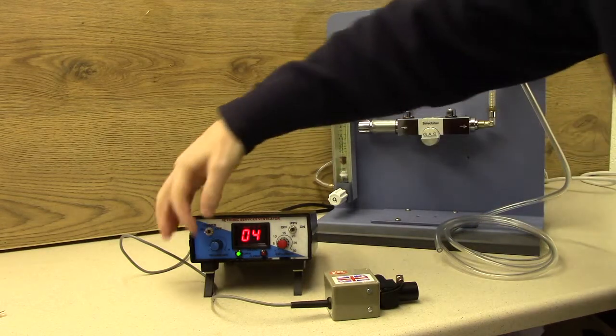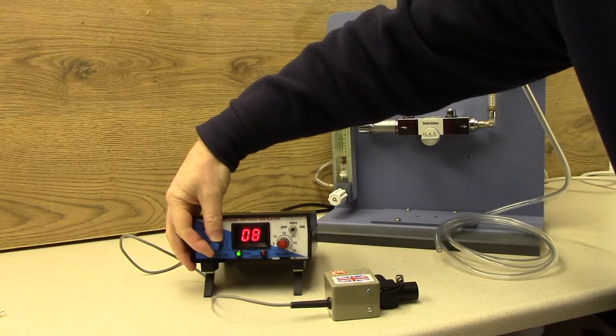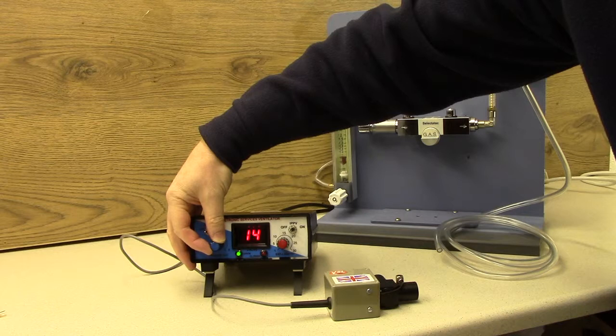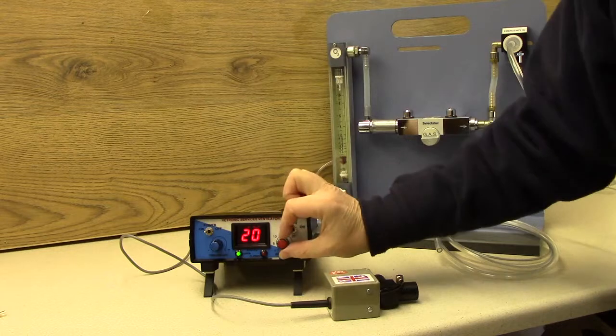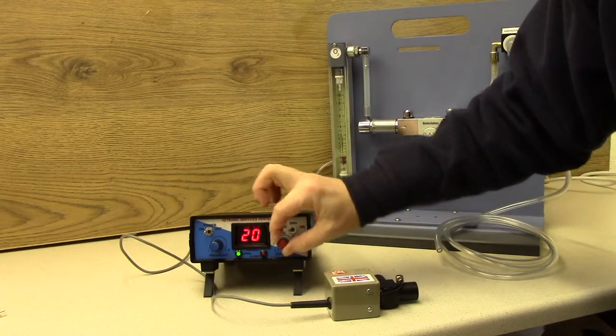Turn the machine on and set the trigger pressure to 20, then set the expiratory length to 1, the minimum.